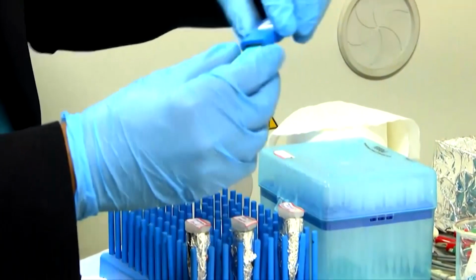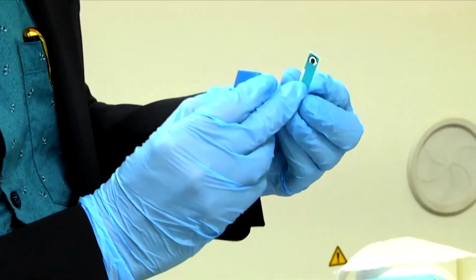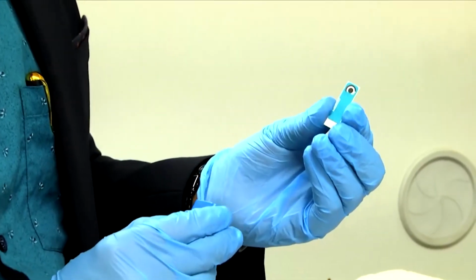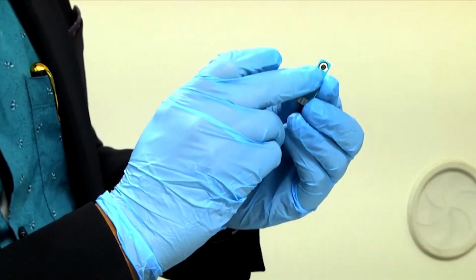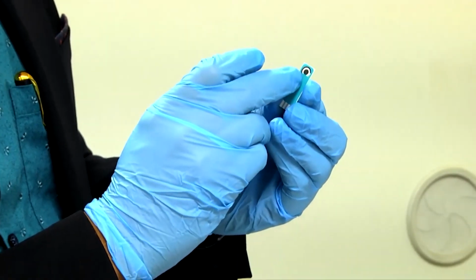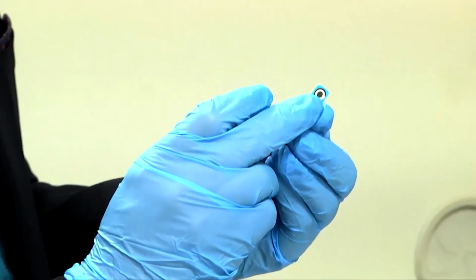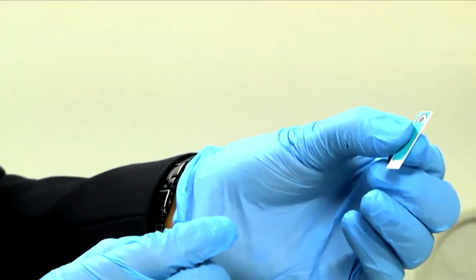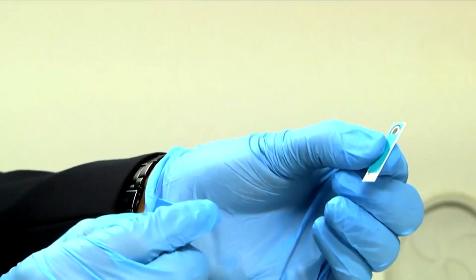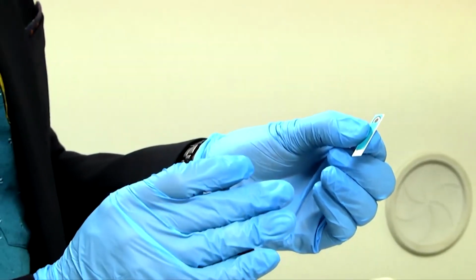See, this is a commercially available 3 electrode system printed chip. The center is the working electrode, this semicircle black one is the counter electrode, and this small semicircle is the reference electrode. This is commercially available. A similar kind of electrode we can design for different kinds of disease diagnosis.